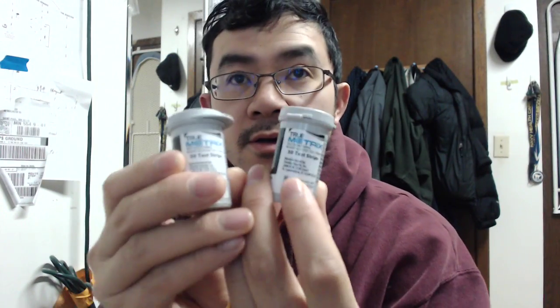Today we're going to do a comparison of some diabetic meters made by True — this is True Metrix and this is a True Test meter. I have two batches of True Metrix and also a couple more of the True Test strips. Just a caveat: I'm not diabetic nor pre-diabetic, but I've been more interested in analyzing and following my results because I don't want to become pre-diabetic or diabetic. Also, I counsel patients and want to see what they're going through and what the options are.